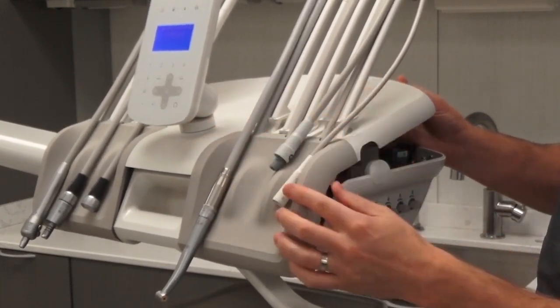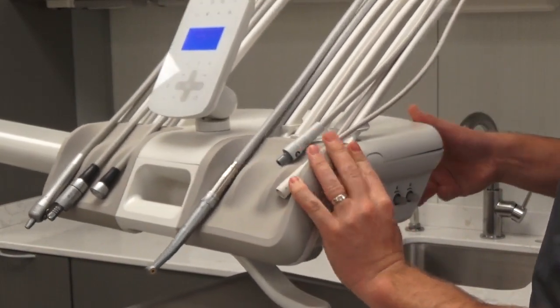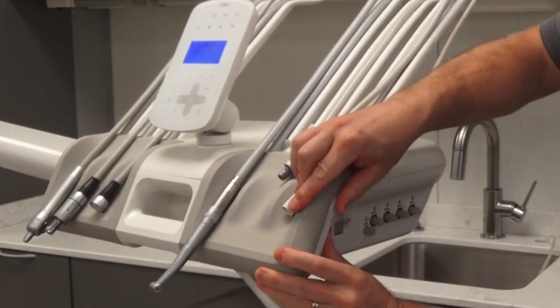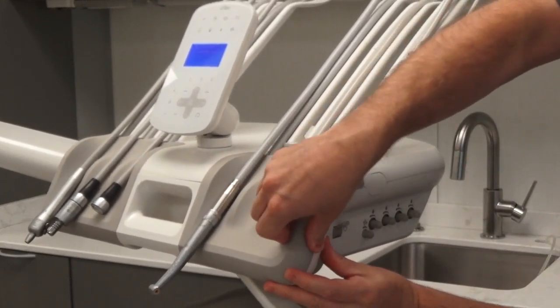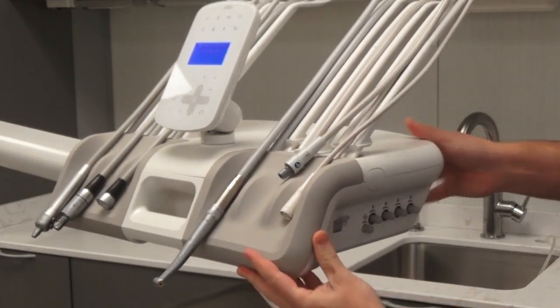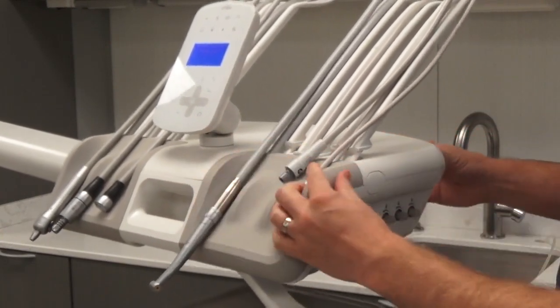Get the little tabs here lined up underneath the whip arm, and once everything's in place, you can push it back and let it drop back down. Once it's in place, you just kind of work that seam all the way around, pressing into the crease as you work your way around. I find it easiest to start from this corner, get it tight, and then work your way around the instrument pad.